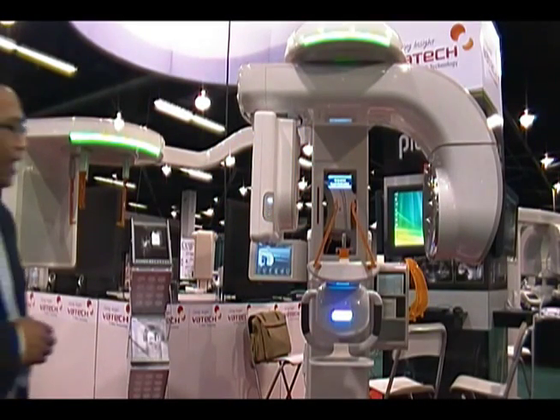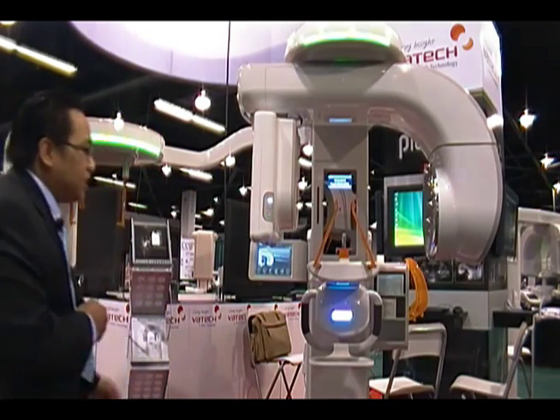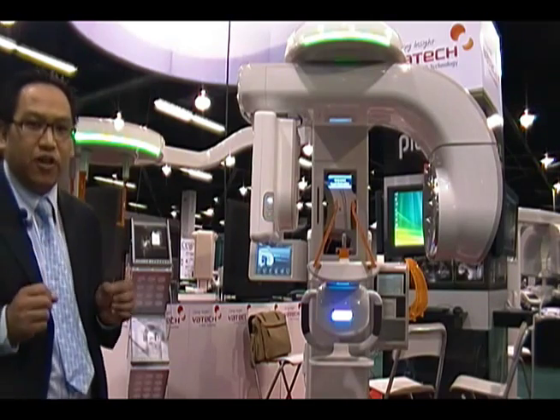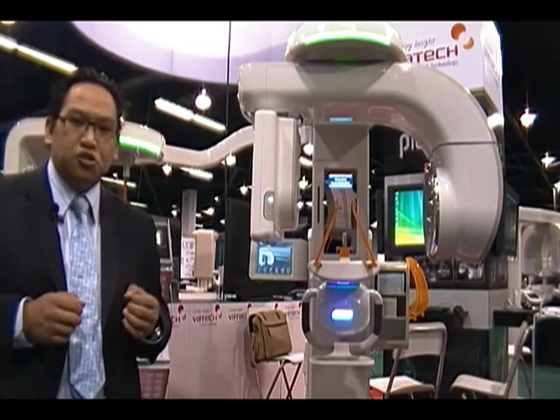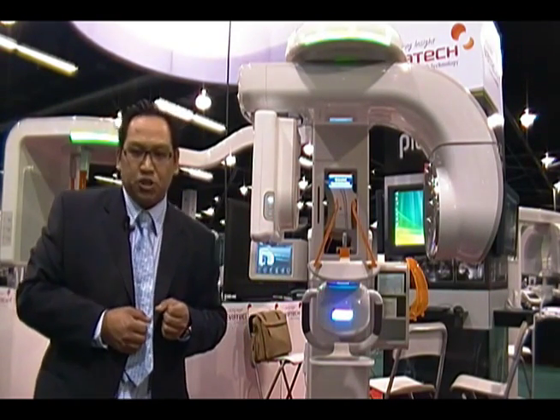In regards to the pan sensor, we developed a new type of sensor technology called the Aria CMOS sensor, where the machine now has the capability of auto-focusing. So instead of the staff member needing to choose the focal trough — small, medium, or large — the patient would just need to be positioned and the machine would choose the correct focal trough for that patient.